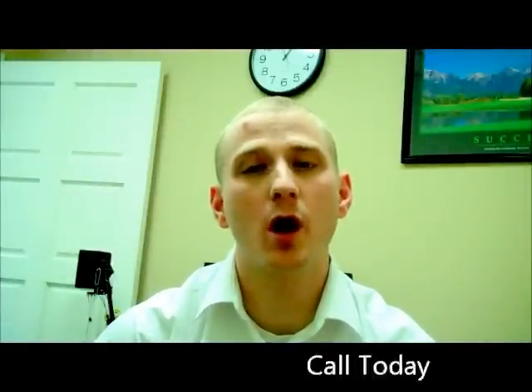Hi, I'm Dr. Tim Hunsaker of Desert Valley Audiology. Today I'm going to show you how to pair your Bluetooth ComPilot to any other Bluetooth device such as a cell phone or the TV device that comes with the ComPilot. In addition, I'll show you how to reset it in case it is not functioning properly — often times resetting it will bring it back to normal function.